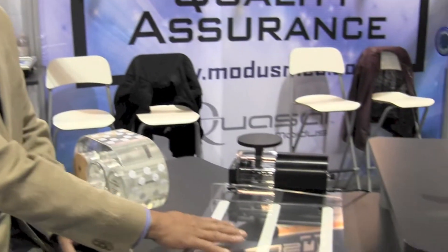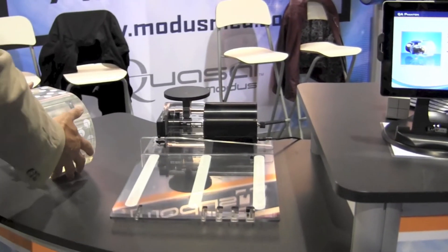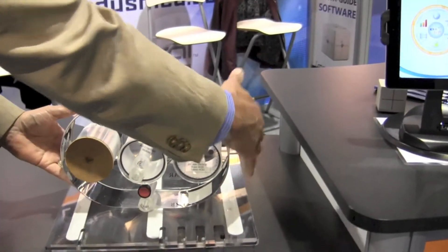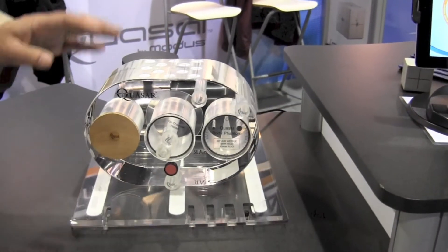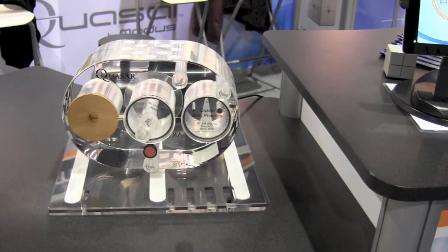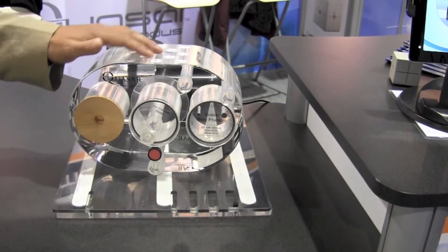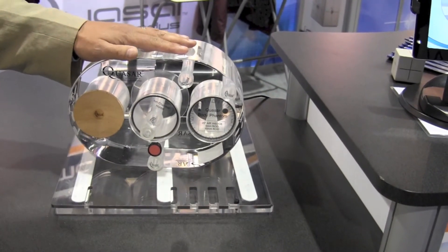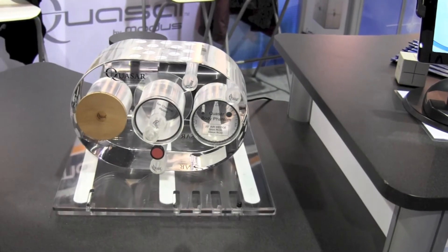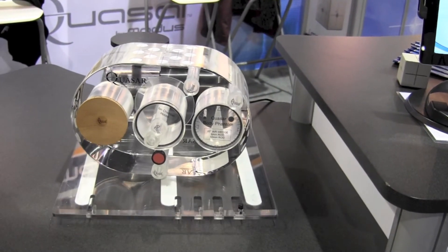The platform right now doesn't have anything on it, but I can put up to 20 kilograms on that platform, so any phantom that I already have can be turned into a breathing phantom. In this case, I've put the multi-purpose body phantom from Modus Medical on the platform.